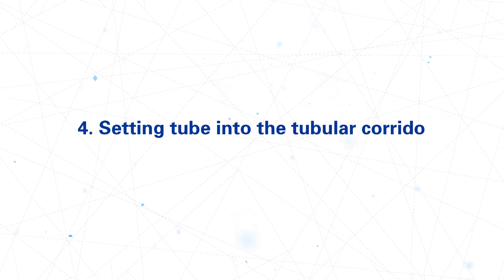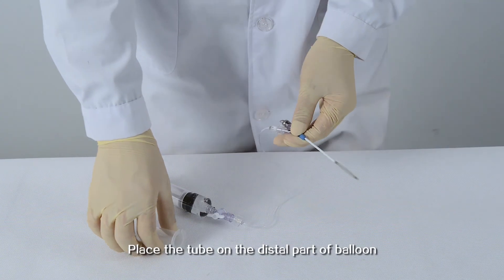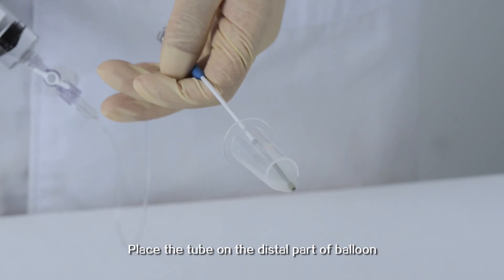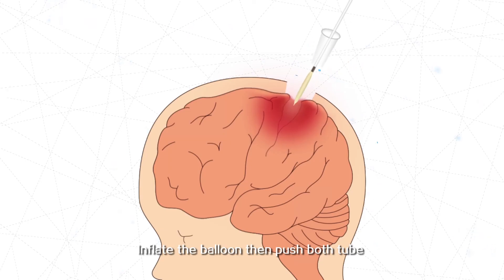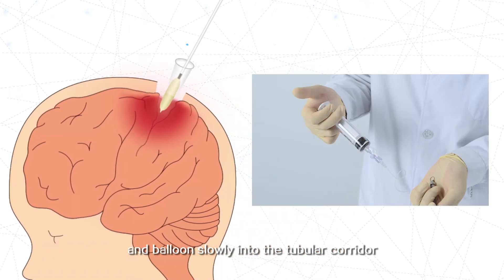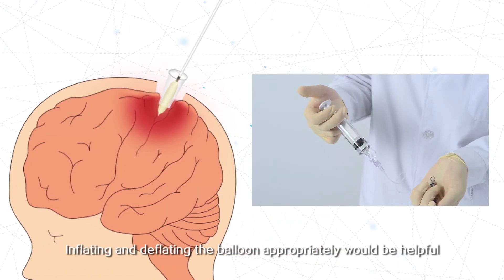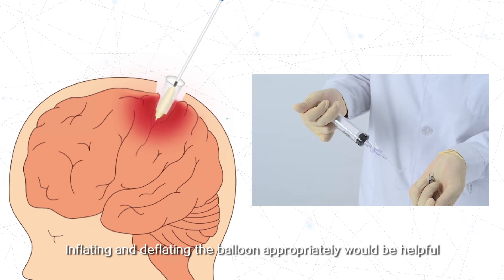Step 4: Setting the tube into the tubular corridor. Place the tube on the distal part of the balloon and inflate the balloon. Then push both the tube and balloon slowly into the tubular corridor. Inflating and deflating the balloon appropriately during this process would be helpful.